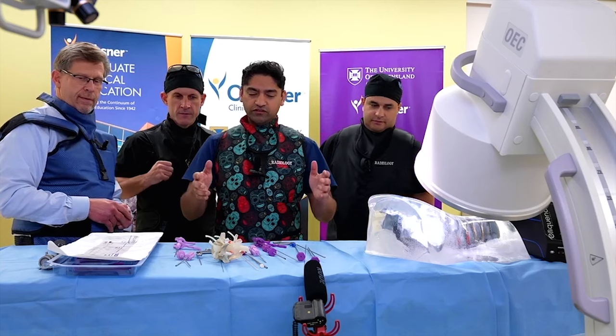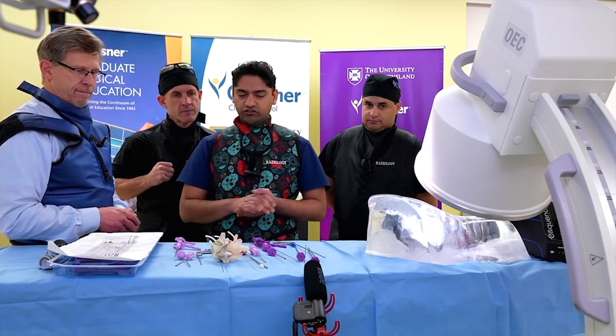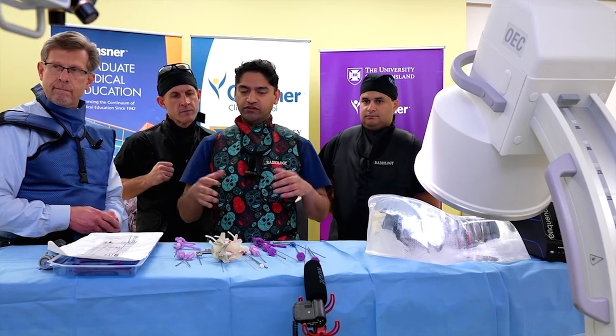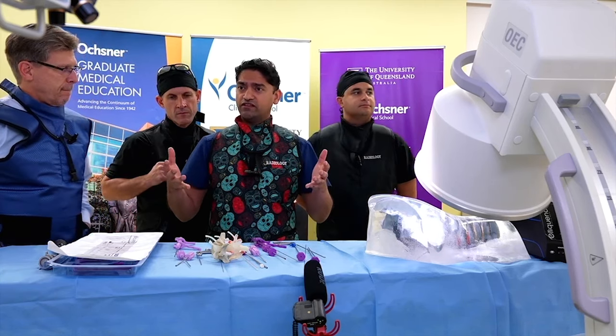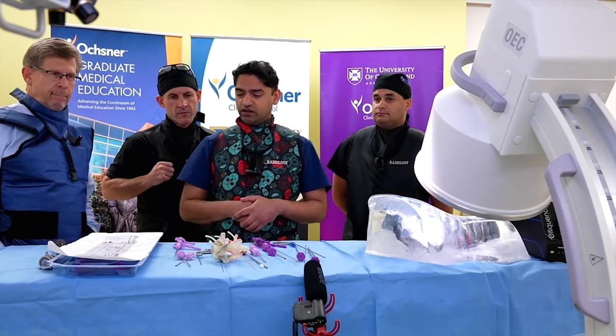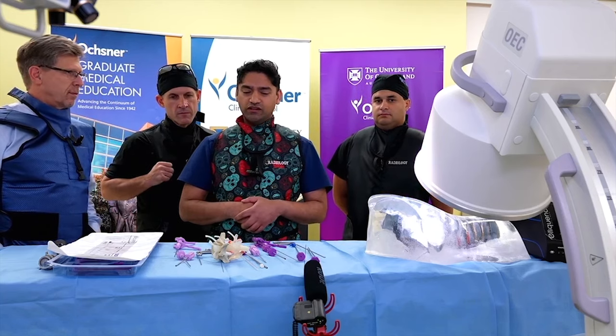We do labs on this as well. They have a lot of great tool sets — if you're interested in endoscopic foraminal approaches, they have a tool set for that. And if you're interested in endoscopic facet joint rhizotomy, they've got an amazing tool set for that too. A lot of cool options here.